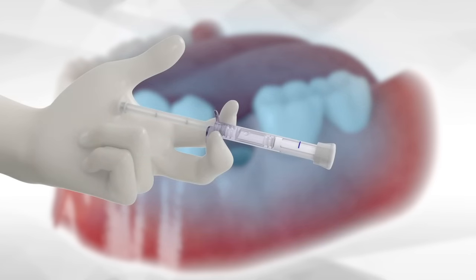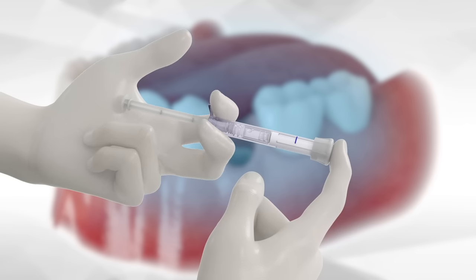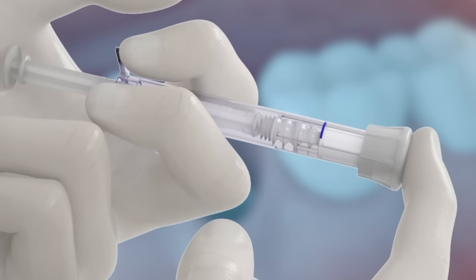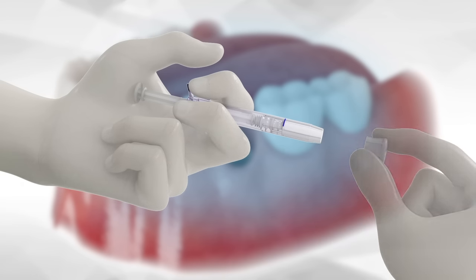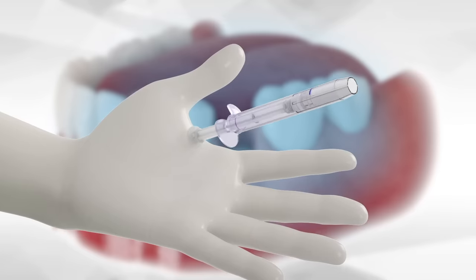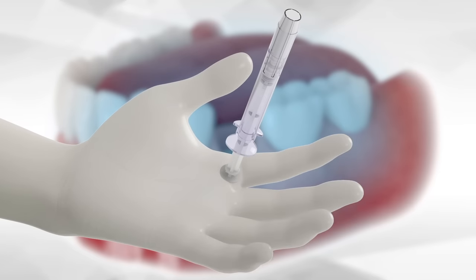The shaft is placed in the palm of the hand, with the other finger at the top of the cap, and the shaft is advanced forward until the first piston reaches the blue line. Then, with a twisting and pulling motion, the cap is removed and the shaft is placed between the pointer and middle fingers, and the syringe is held as can be seen here.